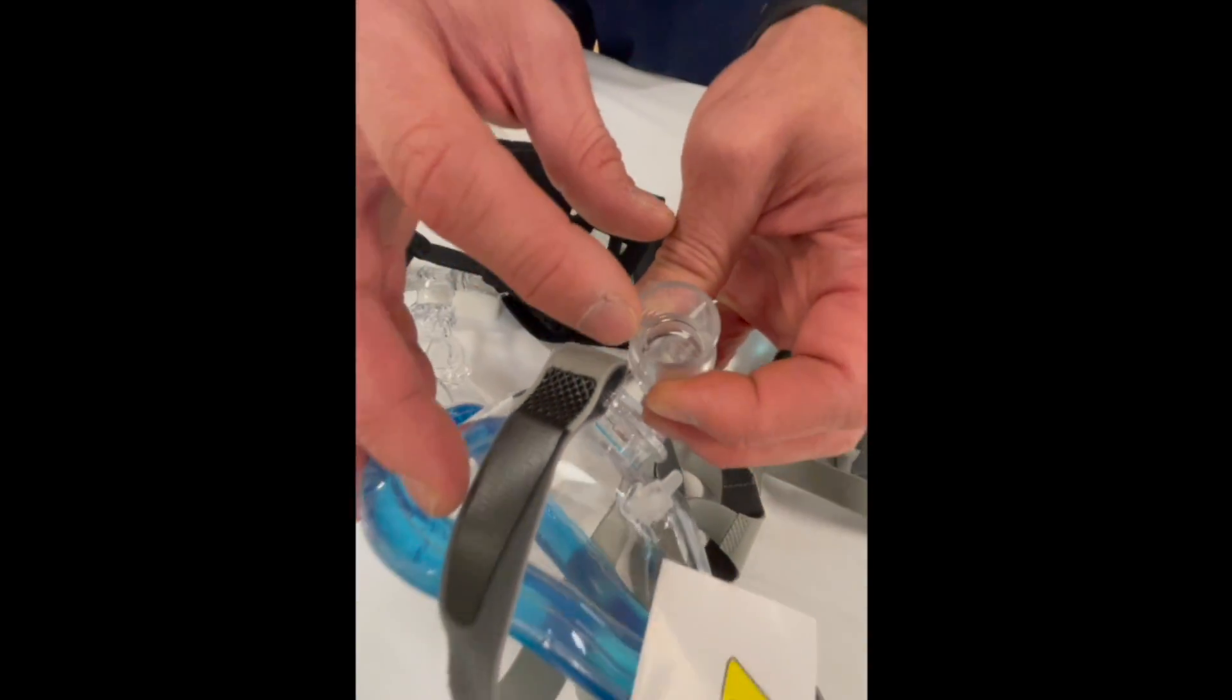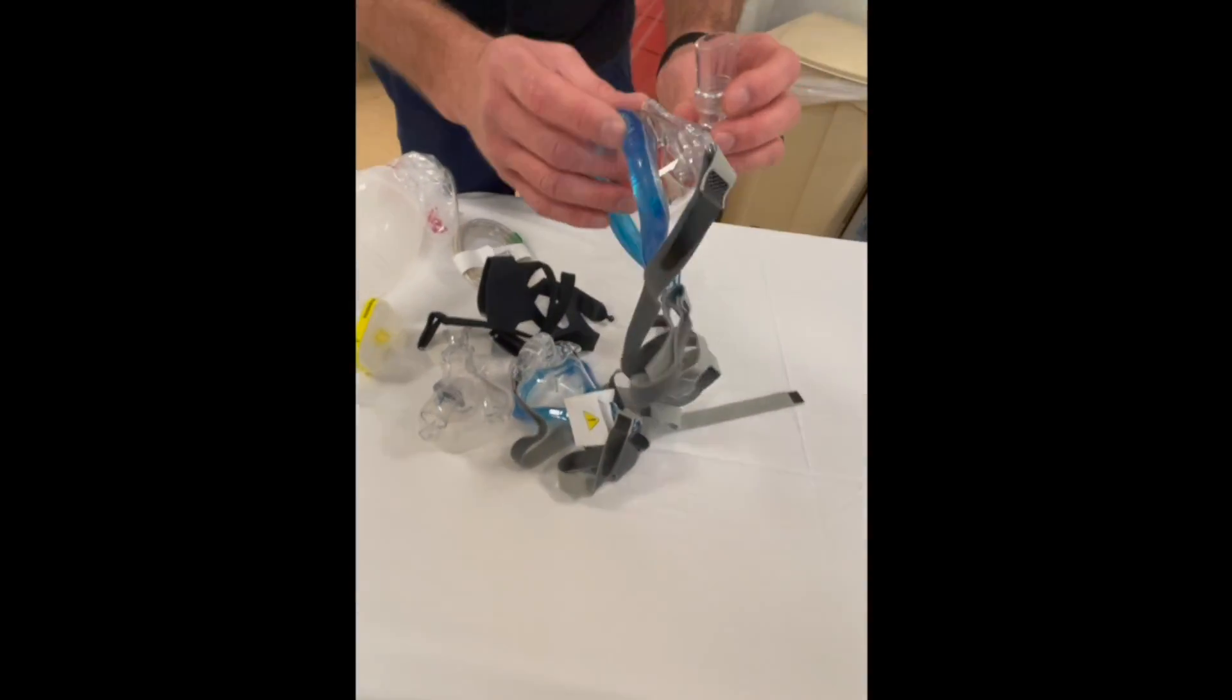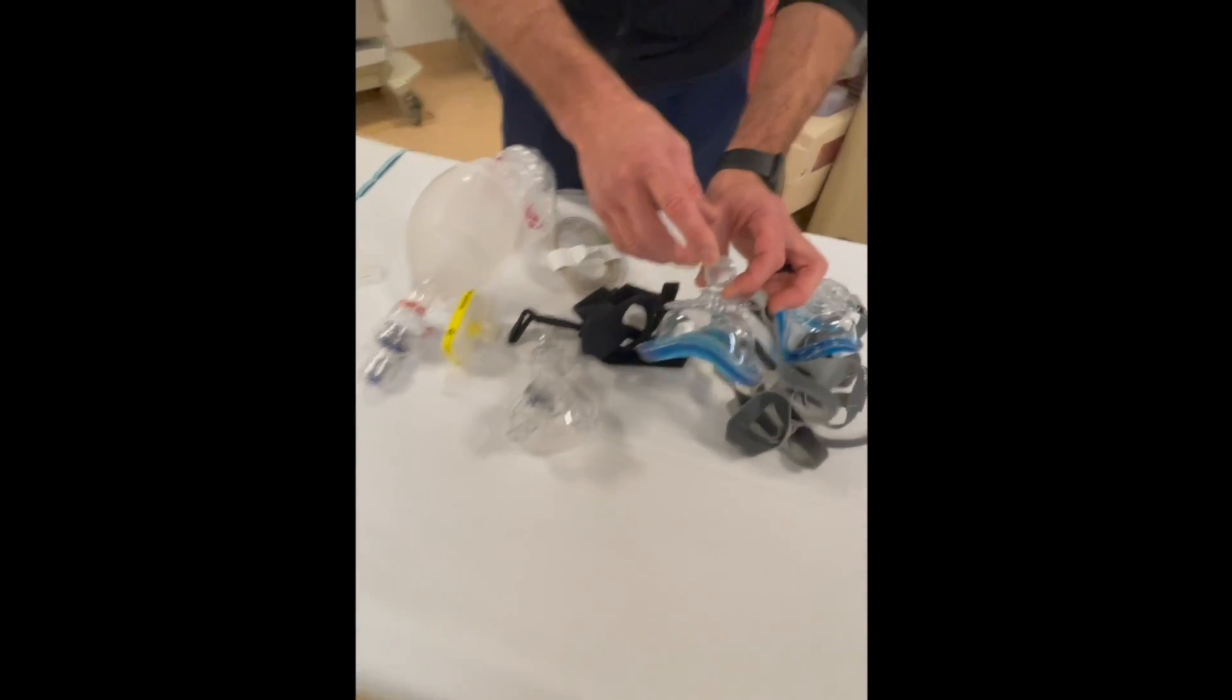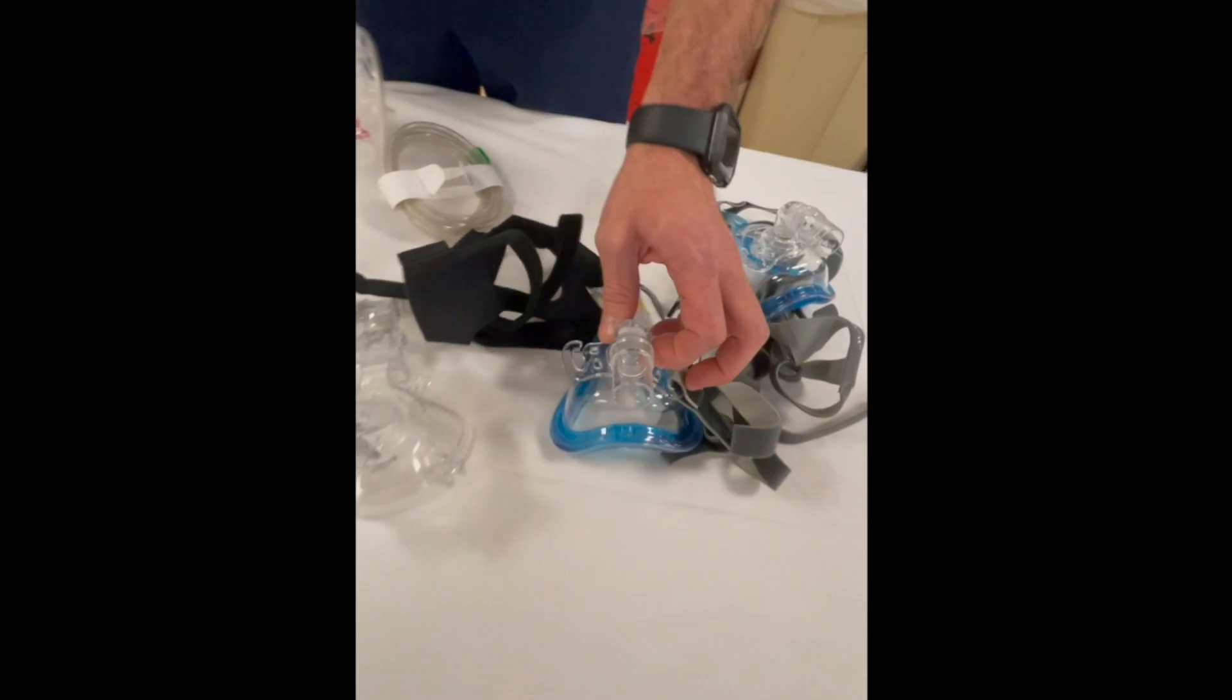If they can't exhale back into the actual BVM, some of them actually don't have a valve like this one. Just know that if there is a valve in there, you actually have to remove it.